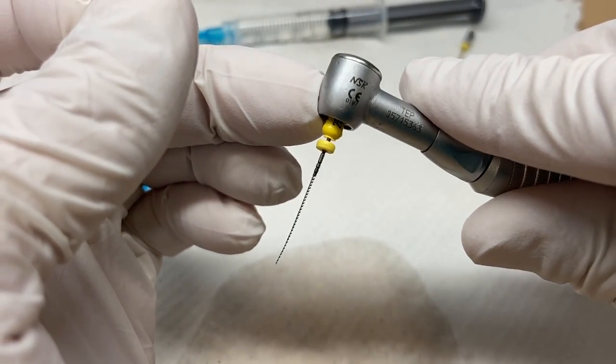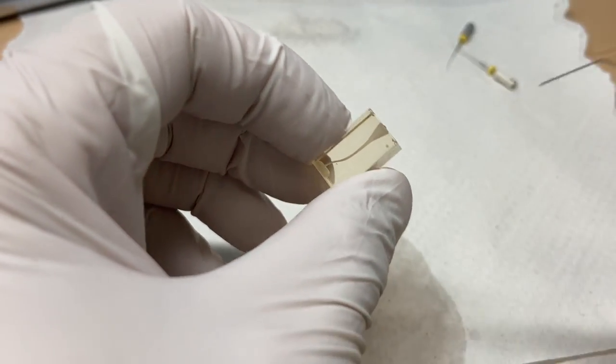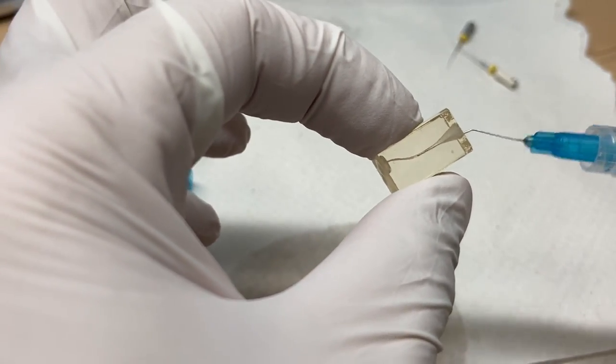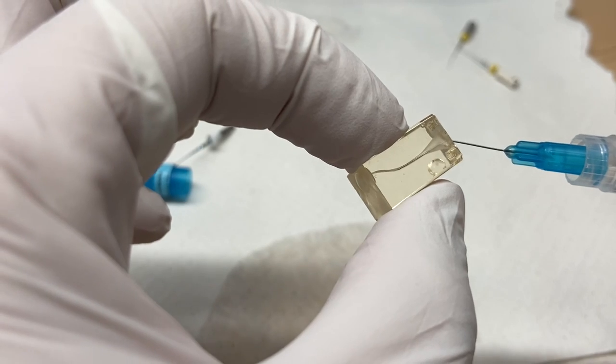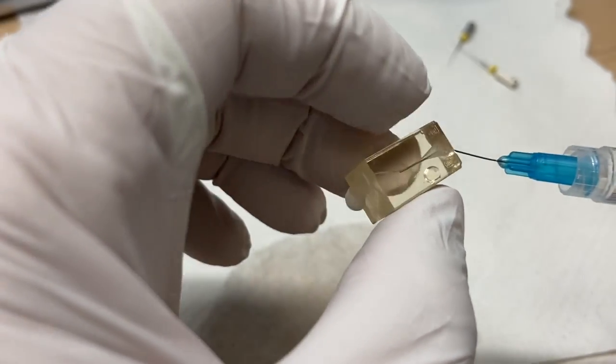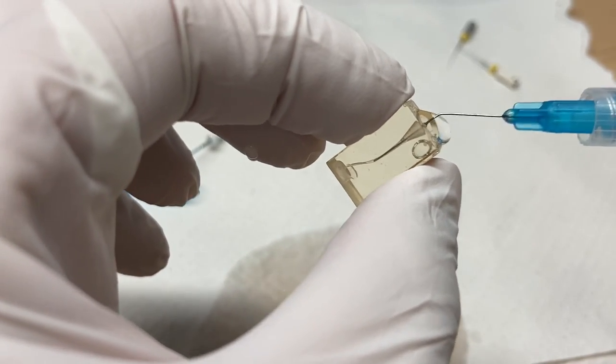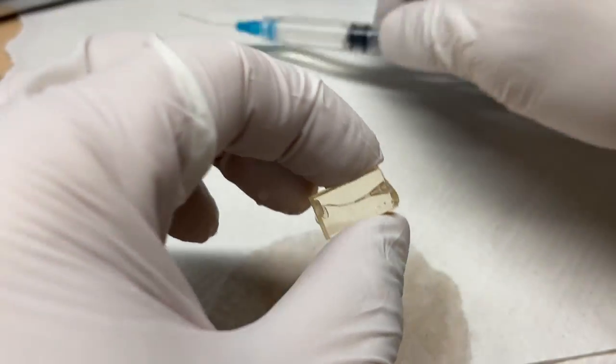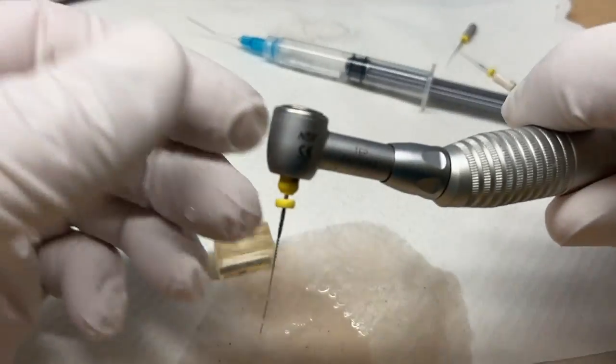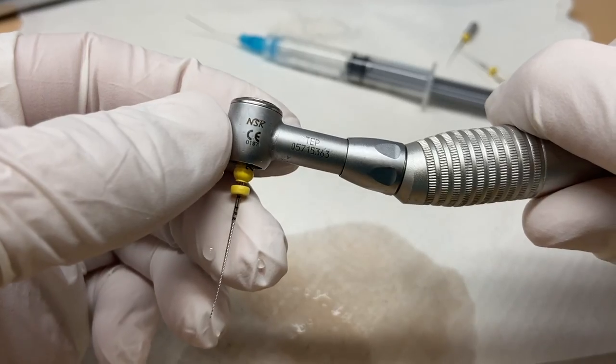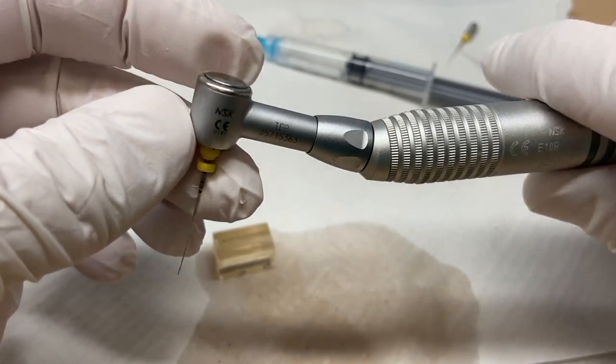It's a reciprocating, essentially it's a reciprocating handpiece. Fancy dancy. Just interesting. So if you're interested in, it's just food for thought using a reciprocating handpiece, the M4 handpiece. And there are lots of different brands on the market. So anyways, I hope that helps. And we'll talk to you soon. Cheers.